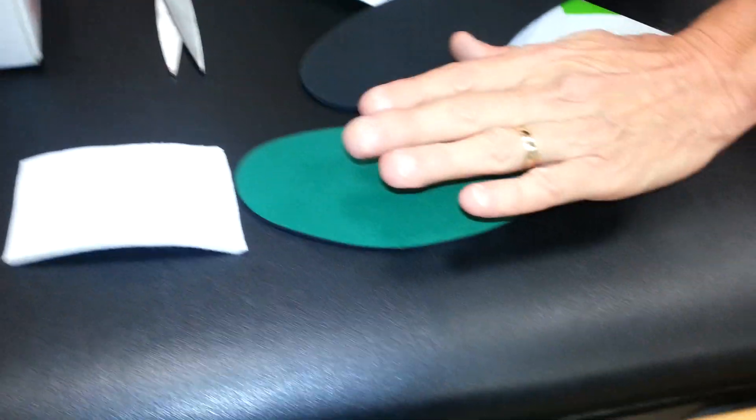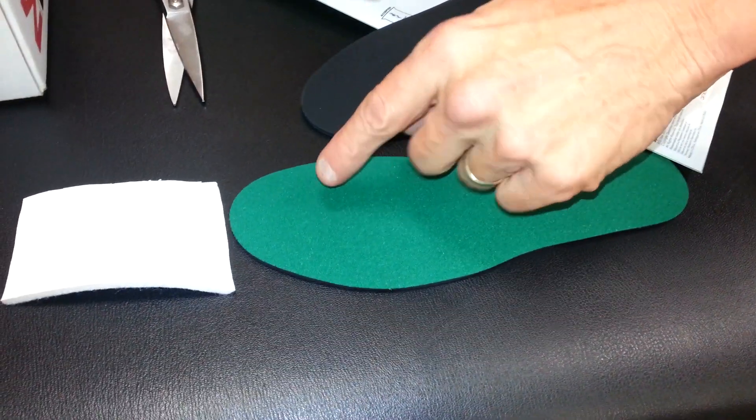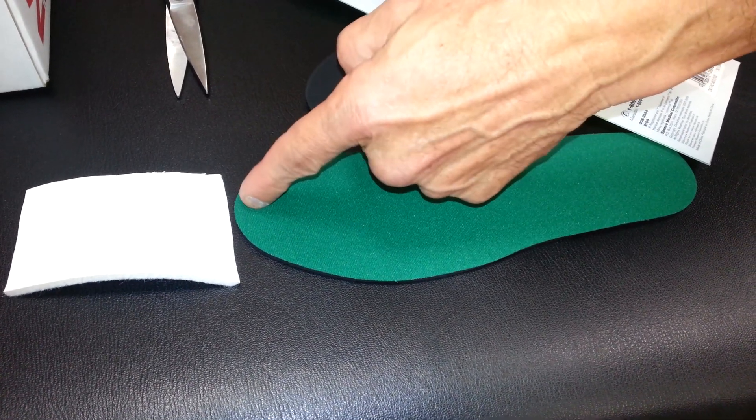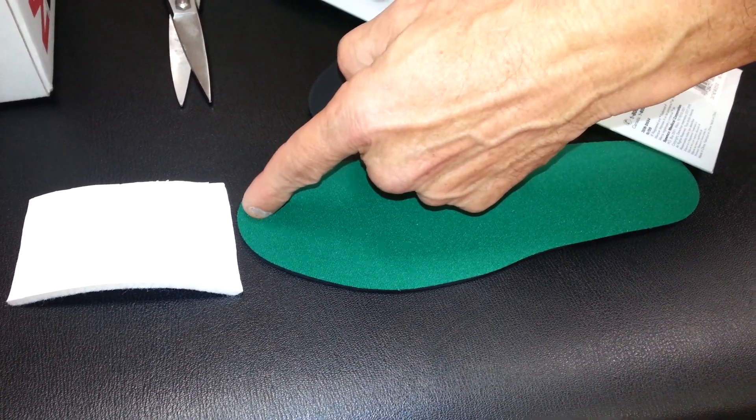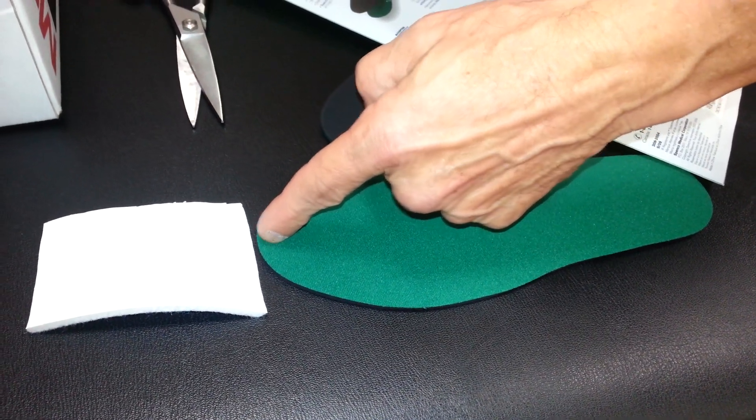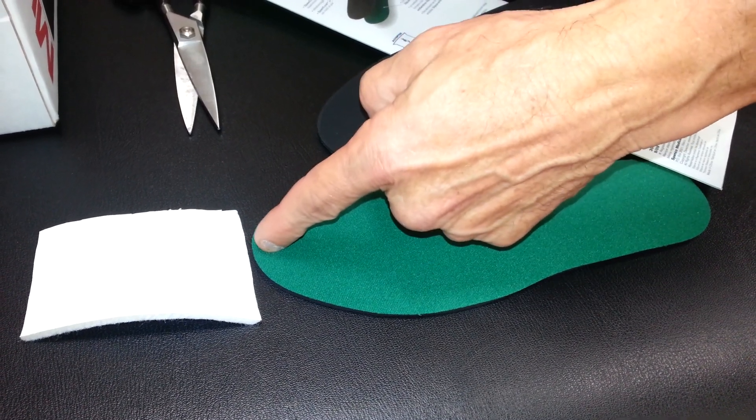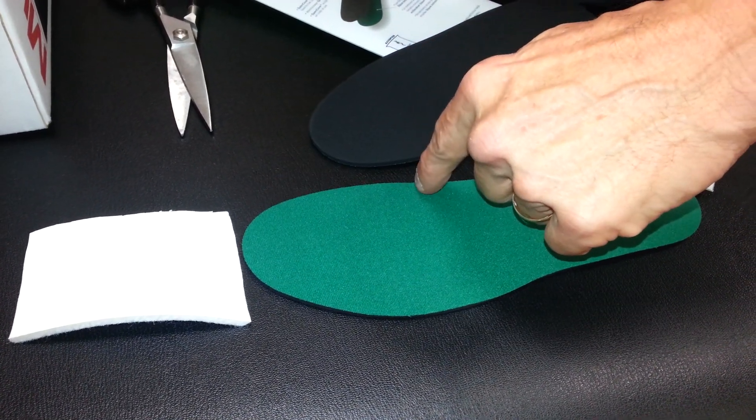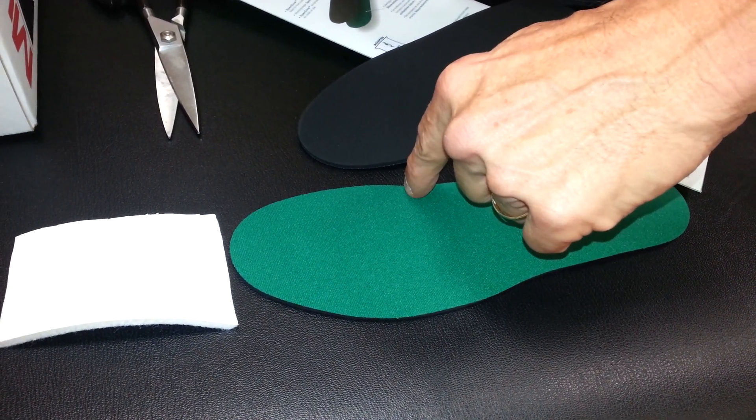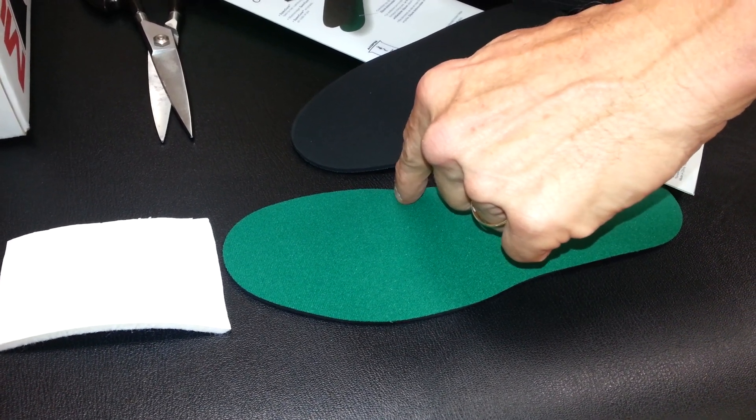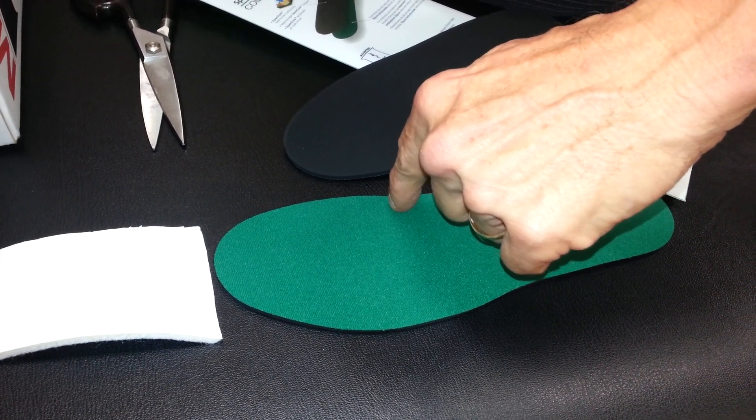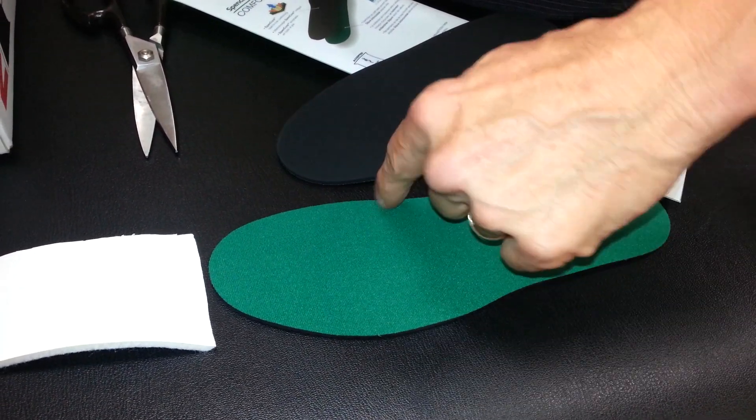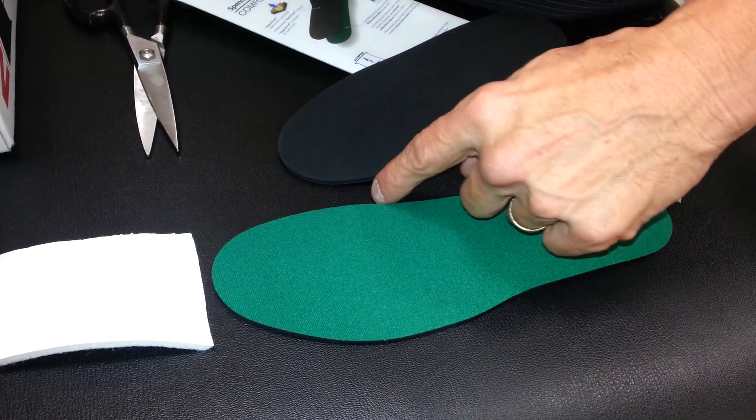Okay, so what you want to do is stand on the insole, make a mark where your big toe is, right in between the big toe and the second toe, and come down just below the base of the foot or just below where you're hurting, or where she's hurting. Then you'll take and draw a line and cut that part out of the insole.